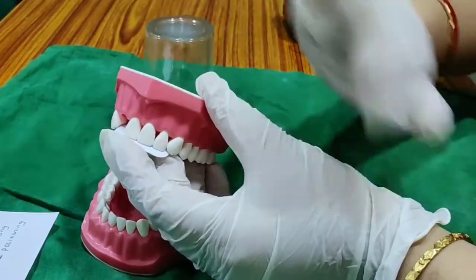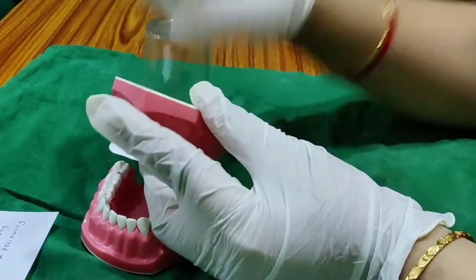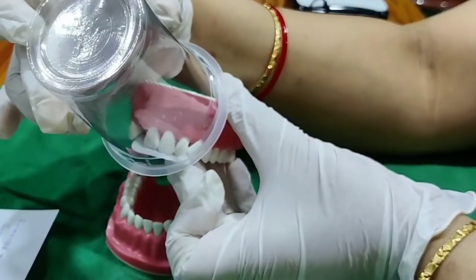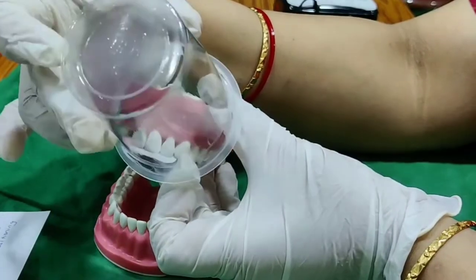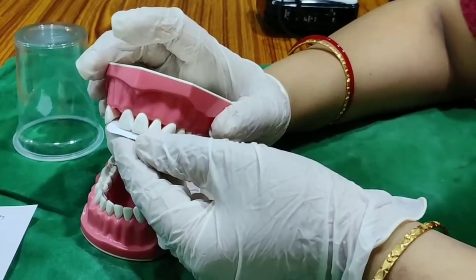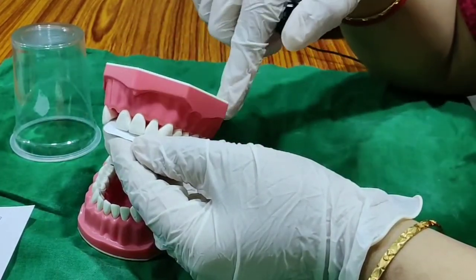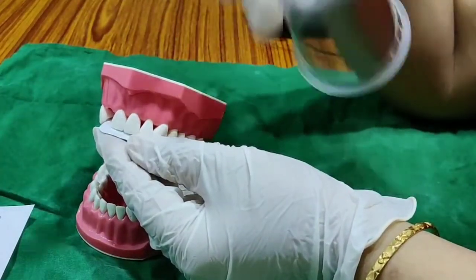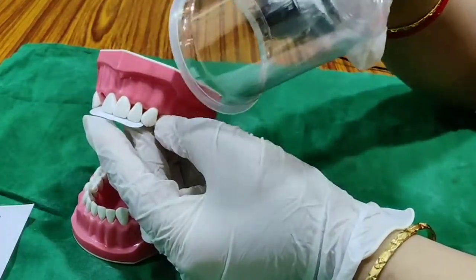Imagine this is the patient's face with the nose. The cone covering the nose corresponds to the 40-degree angulation for anteriors. For the canine, we use the ala-tragus line — the line drawn from the tip of the nose to the ear, which we use in complete denture construction. The roots are said to end approximately at this line, so the cone should always focus along the ala-tragus line. We cannot draw on the patient's face, so we imagine the line and place accordingly.